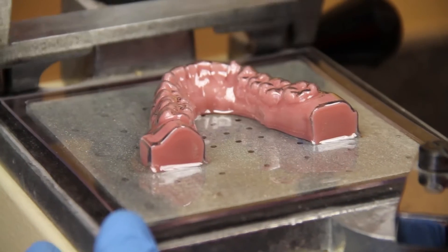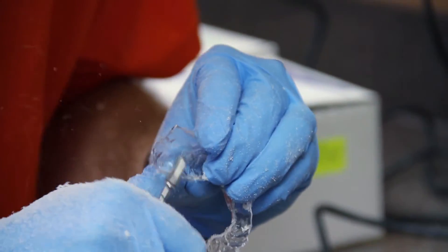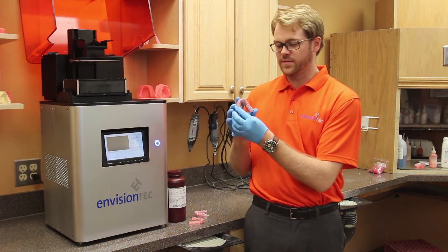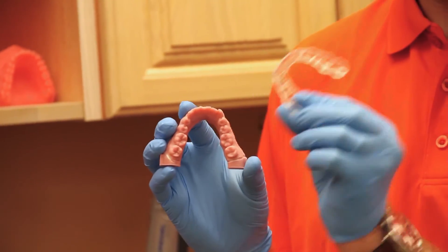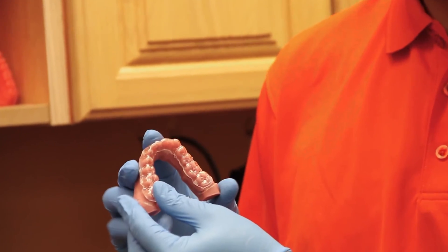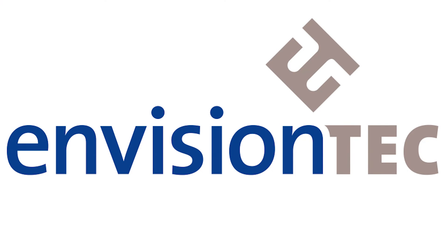You can remove the model from the thermal form without having any fracturing pieces left into the suck-down itself, which allows us to use this model for multiple thermal forming applications. And then we're able to finish up the suck-down and remove it from the model. And now we have a workable orthodontic aligner to deliver to a patient. Thank you. We'll be right back.